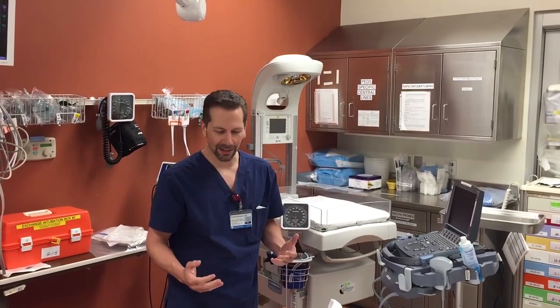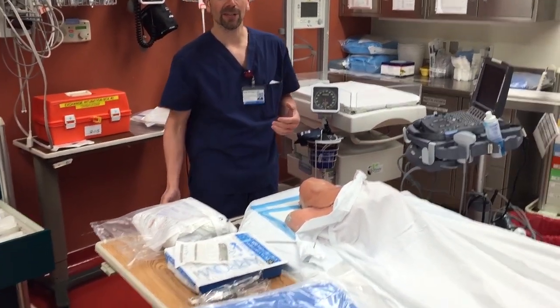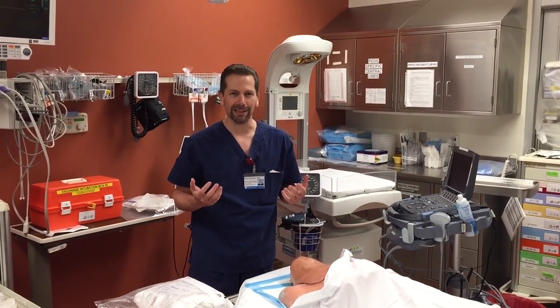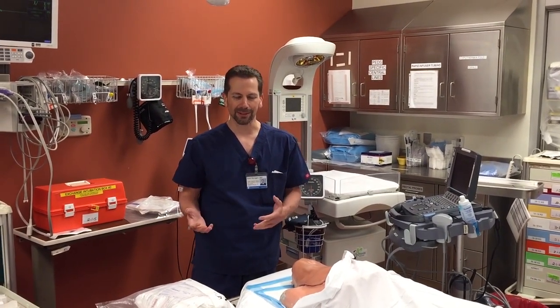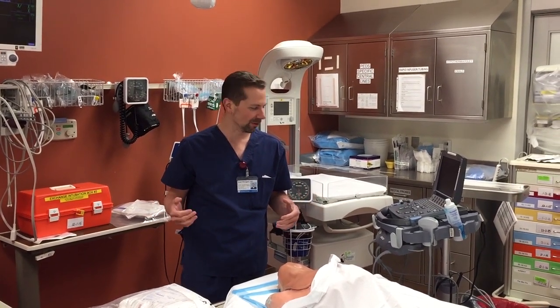So very quickly, how to do a full sterile central line. The setup you're going to see right now is what we have to work with. We are actively pursuing getting a much better bundle that's going to have everything in one place and not involve the rigmarole you're going to see here.